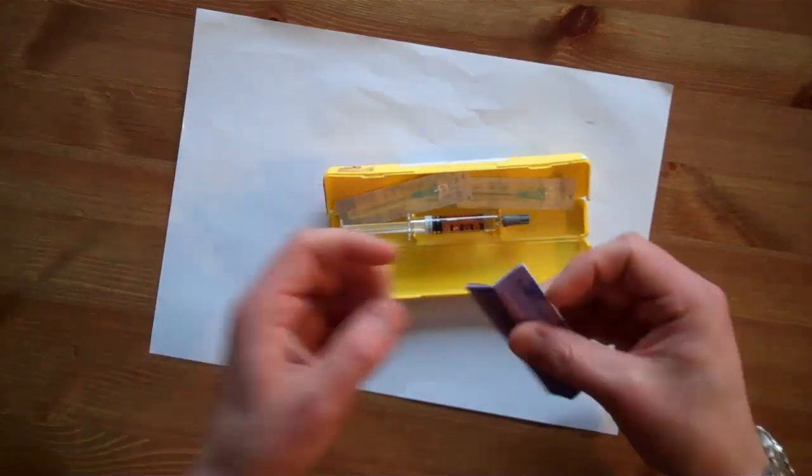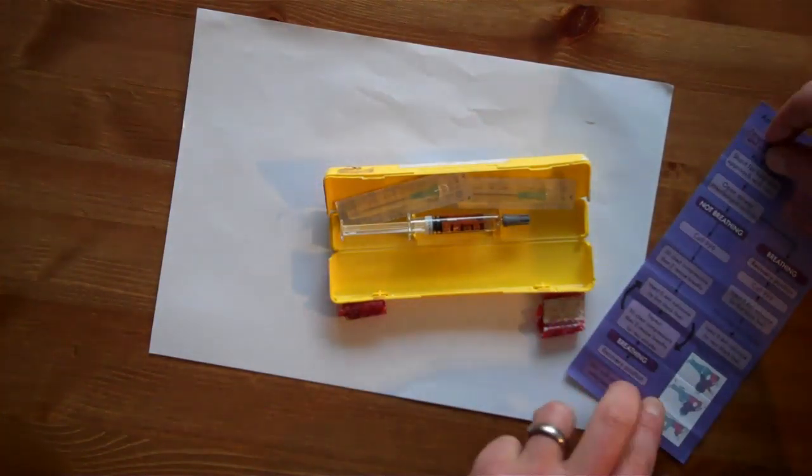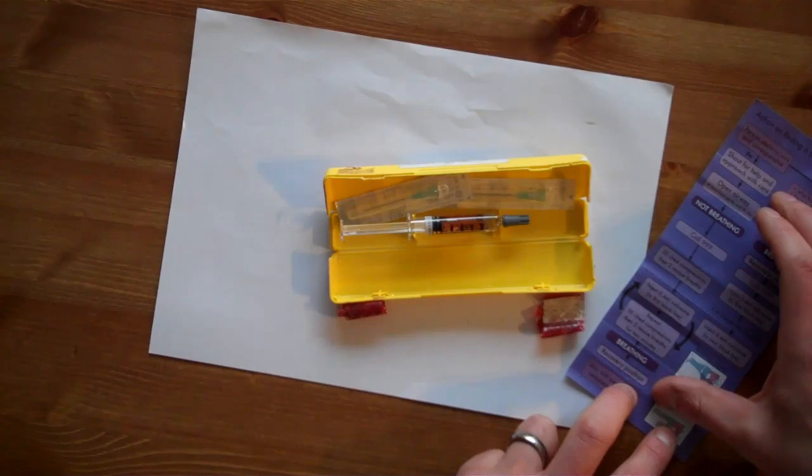We take out the patient information leaflet, open it up and set it aside. This gives us a simple guide to follow for its administration.